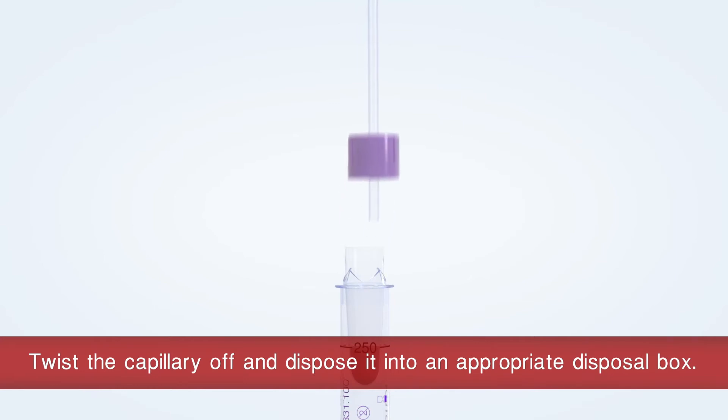Unscrew the cap including the end-to-end capillary and dispose it into an appropriate disposal box.